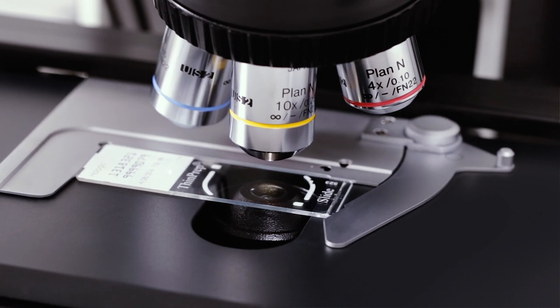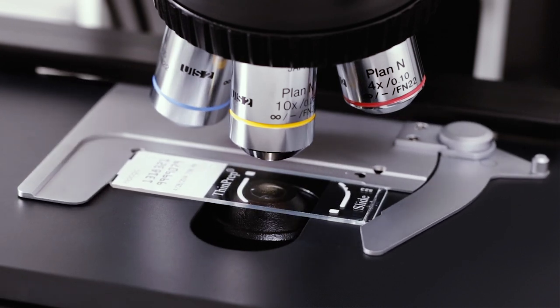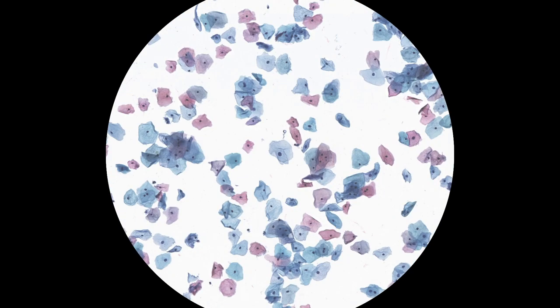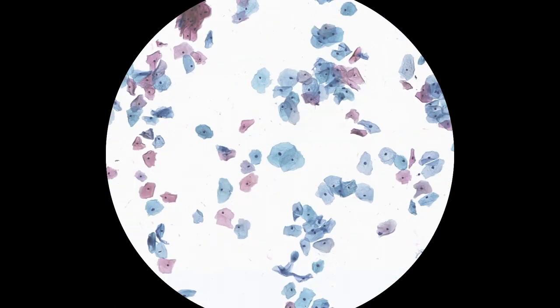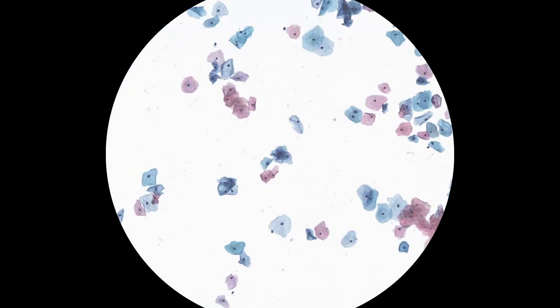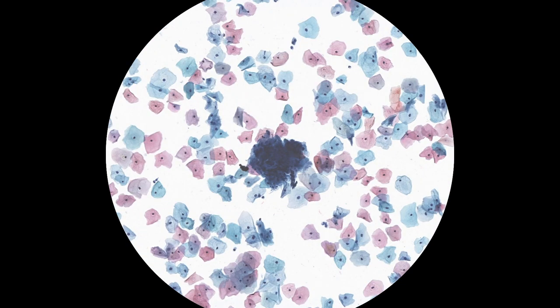The ThinPrep Integrated Imager then screens the slide using a proprietary imaging algorithm. Each cell and cell cluster is analyzed using optical density analysis. A software imaging algorithm interprets the data and identifies areas of the slide that should undergo further review by a cytotechnologist.